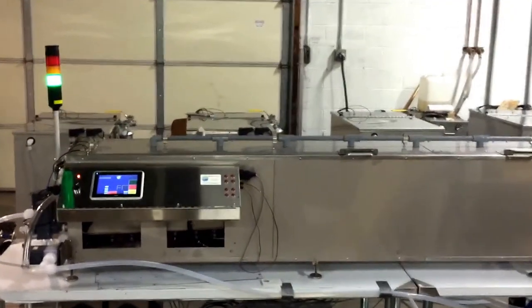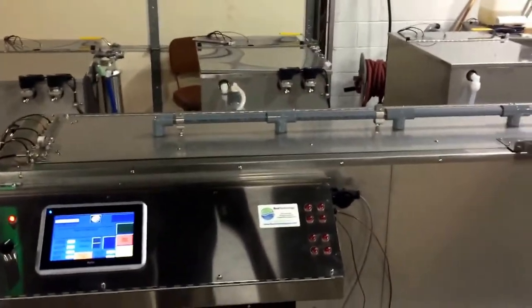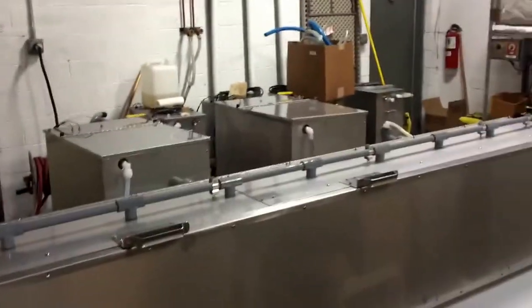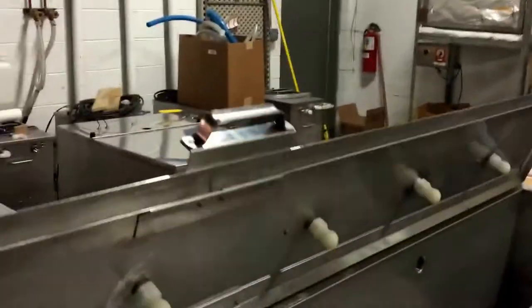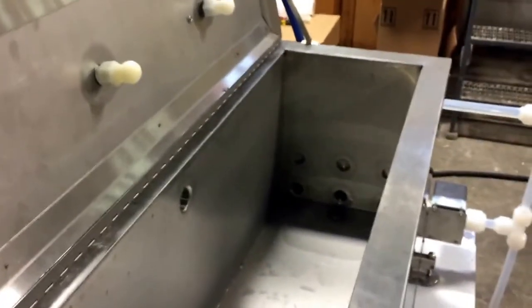This is a guide wire cleaning machine — an automated wash, rinse, passivate, rinse, and dry system with ultrasonics. It's approximately 10 feet long for cleaning medical guide wires. The apparatus has level floats on one end and drains and fills from both ends.